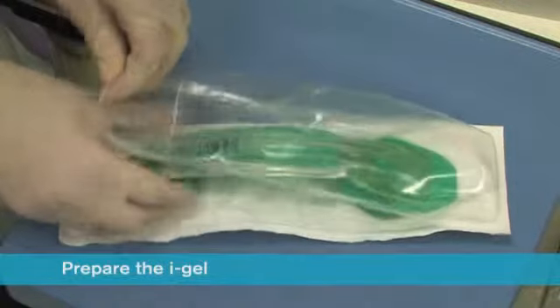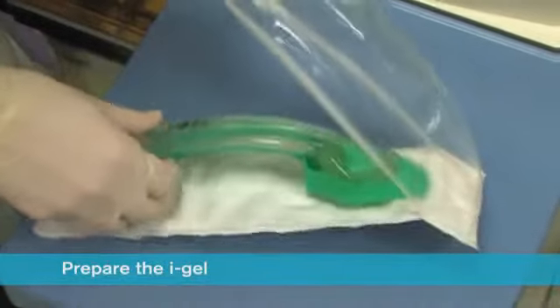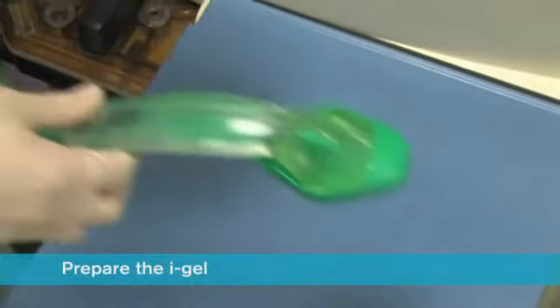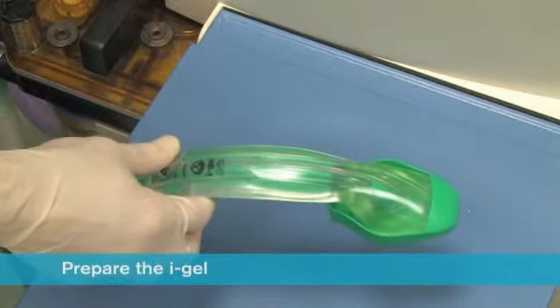Ensuring that you conform to local policy for hygiene, open the iGel package and on a flat surface take out the protective cradle containing the device.